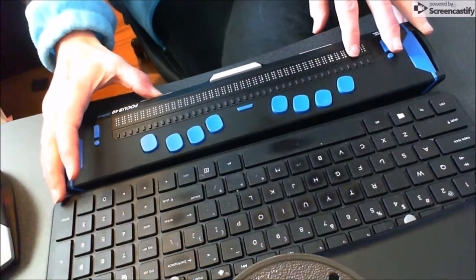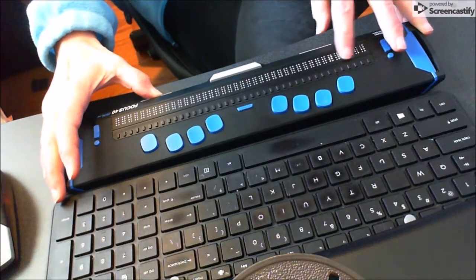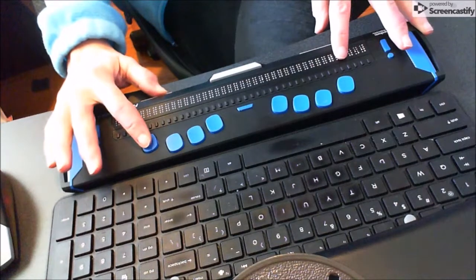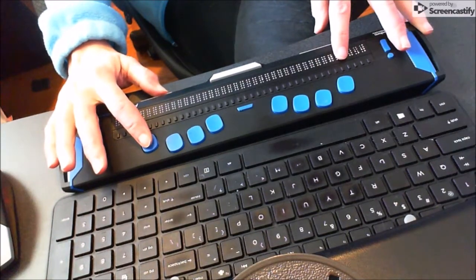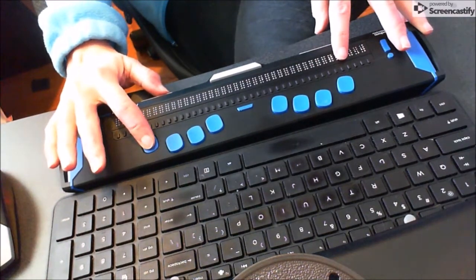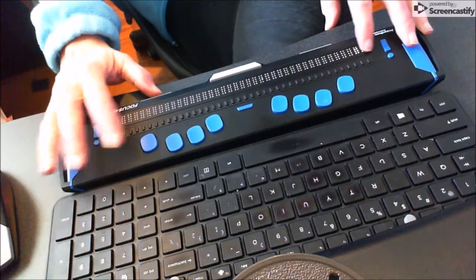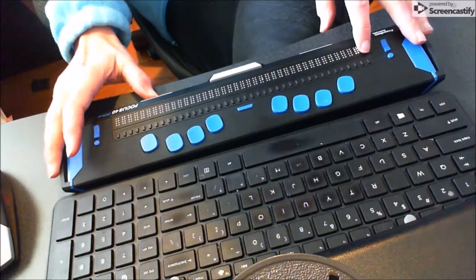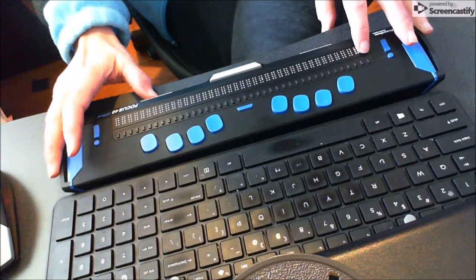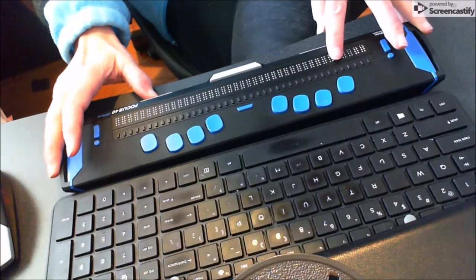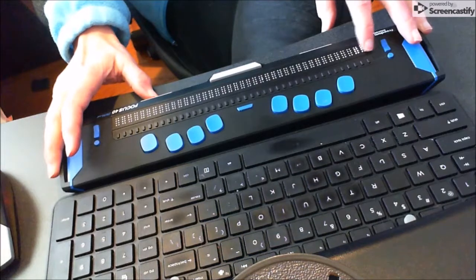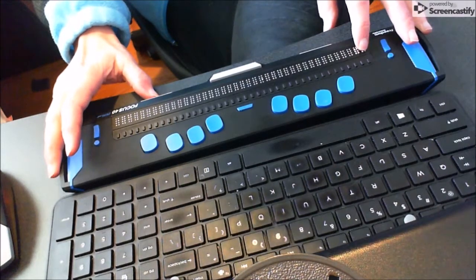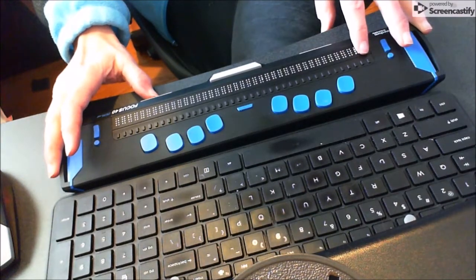Once I'm at the menu item that I want, I'm going to press dot 8 to go into all of my options. Right here, it basically goes between off, low, medium to fast on how it's going to speak. I actually have it on two full cells.